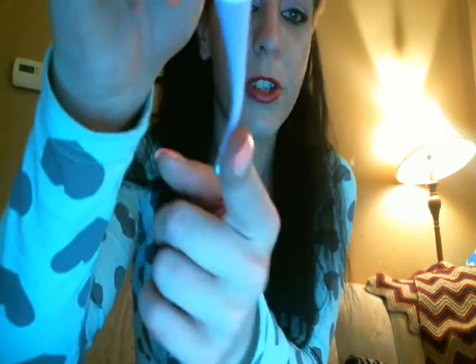It beeps softly — it's not like an alarm in your ear, it's very soft. Like it says, it's flexible, so the tip obviously bends. It's very soft, it's very good. I like it. I give it a 100% five-star rating. I love it, and it works real quick — 30 seconds and done. The color is friendly and I have a girl so they might think it's fun to take their temperature.